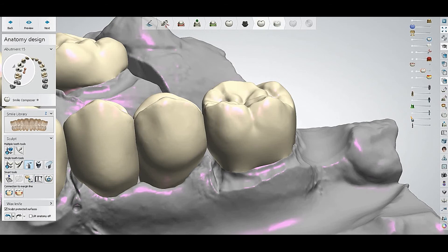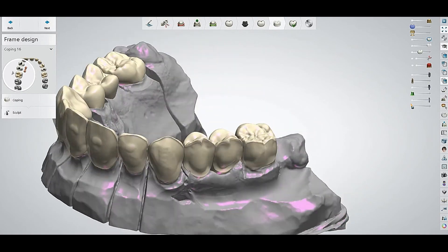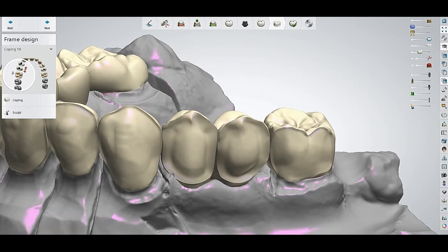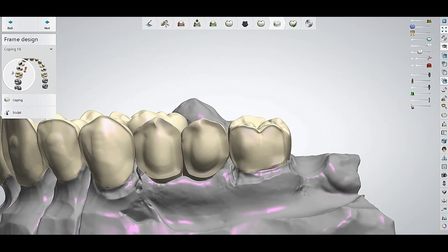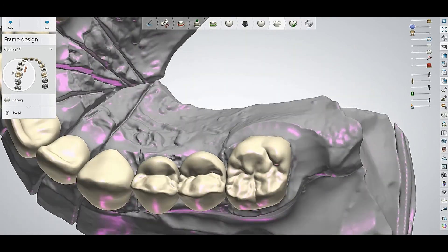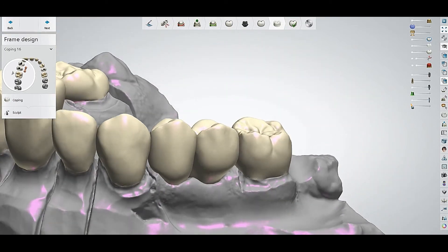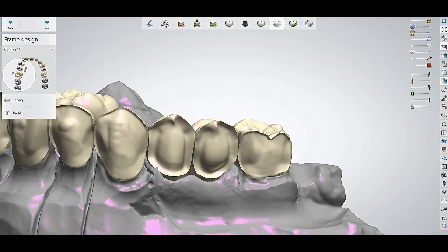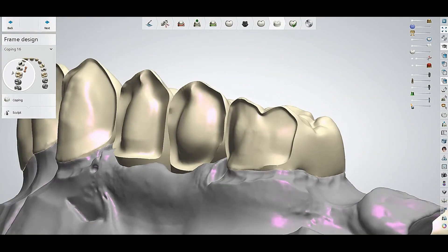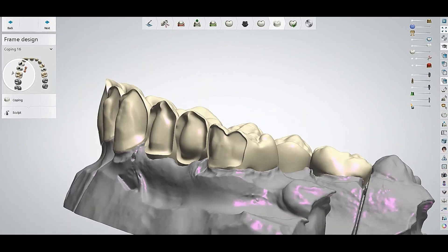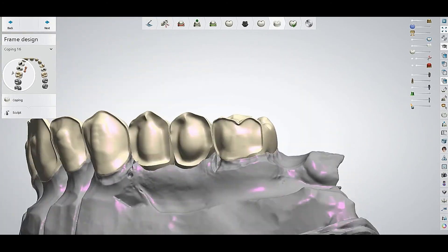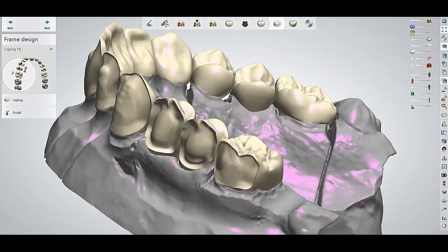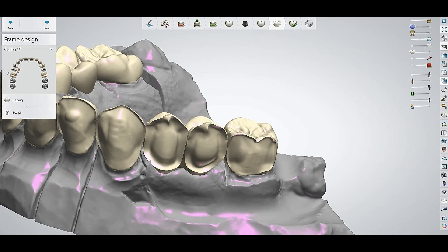And now you can see it has made the cutback. It's not showing any error. So this is the easiest way to solve this problem, just making the emergence profile slightly bigger and your problem is solved.